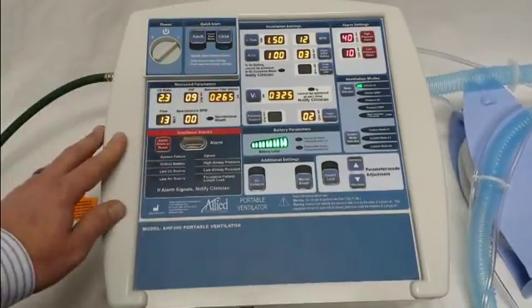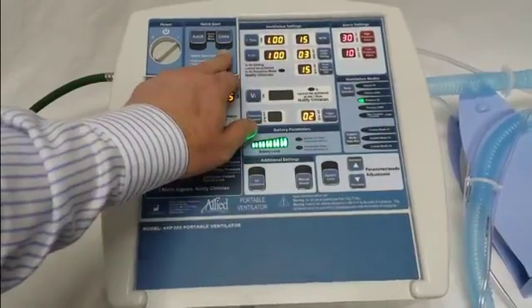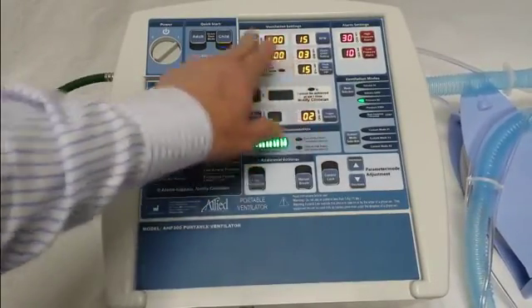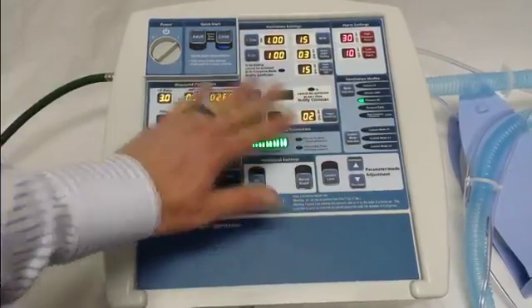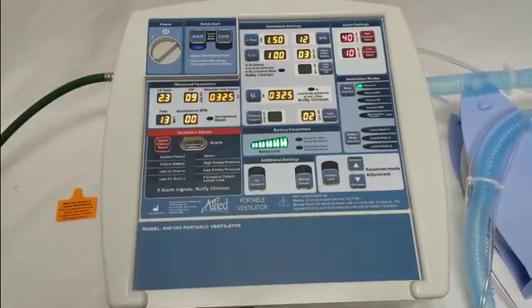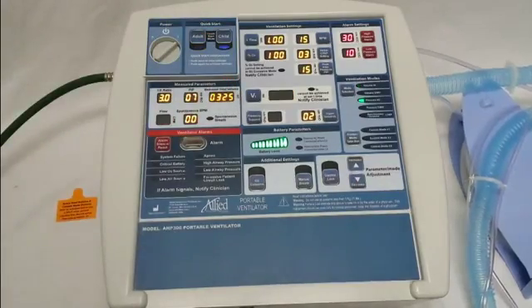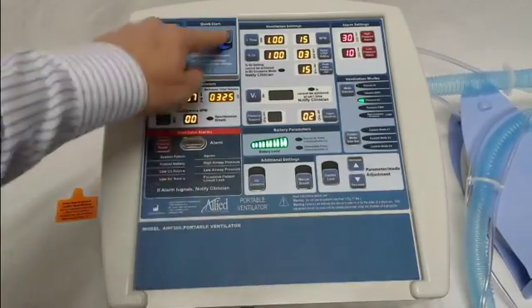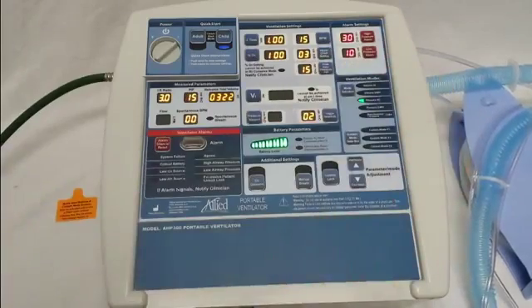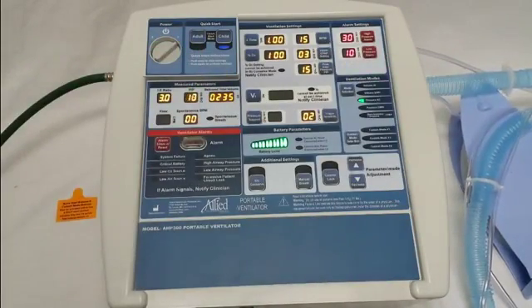When you press the button, it'll actually display the settings and it'll keep blinking. What that's saying is: would you like to use these settings? If you don't do anything, it's going to revert back to the last confirmed settings. However, if you view them and that's the setting you want, you simply press it again and it'll start ventilating in the preset mode that you've selected.